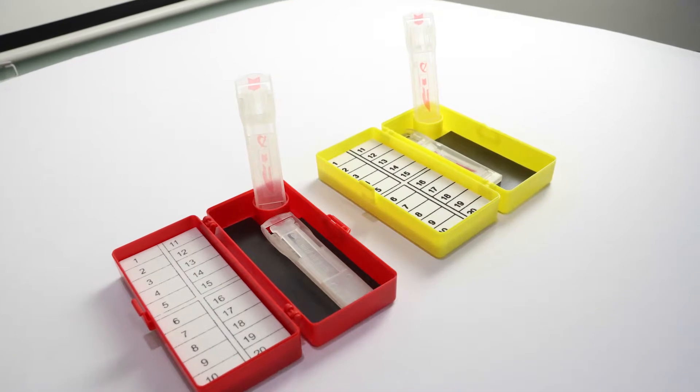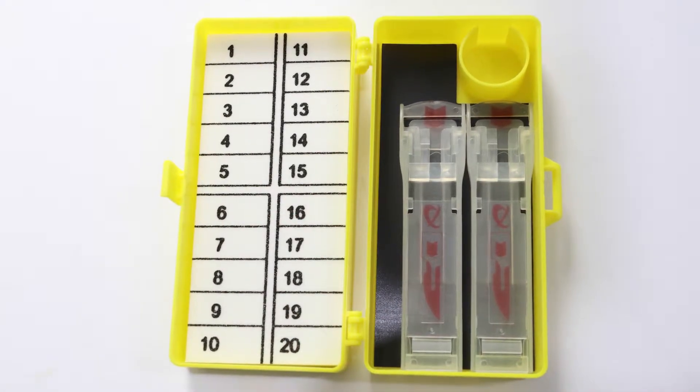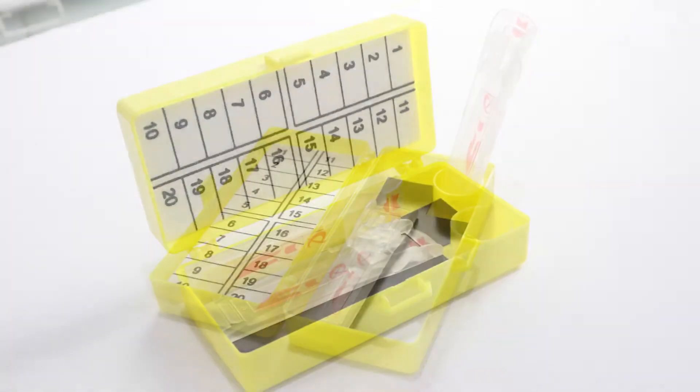This is the ClickSmart blade needle system. The blade needle system incorporates a high-quality 20-count needle counter with a safe scalpel blade remover to contain sharps in the operating room.